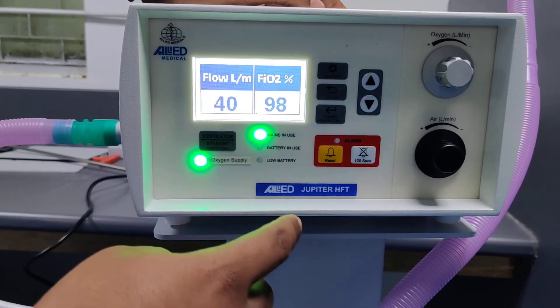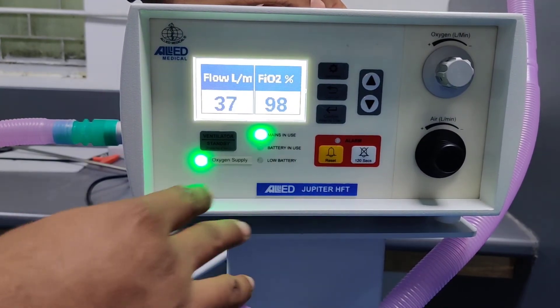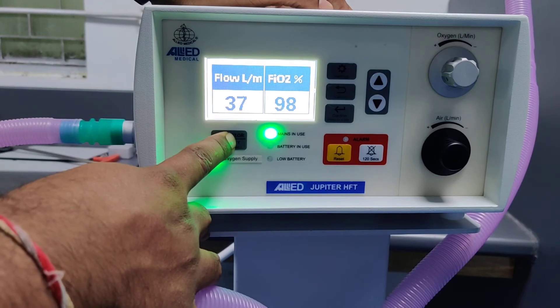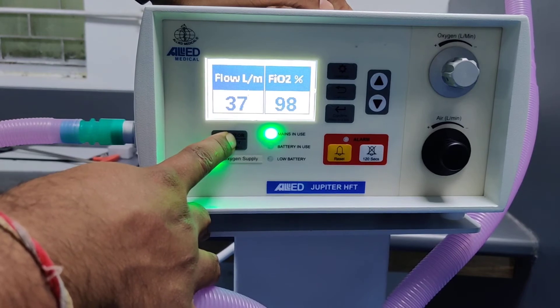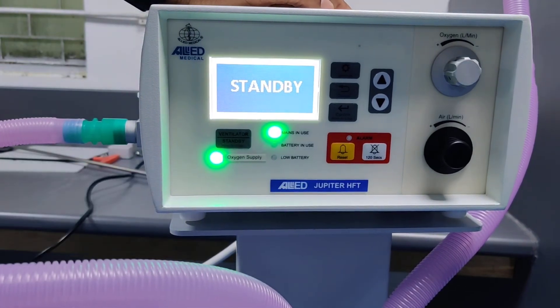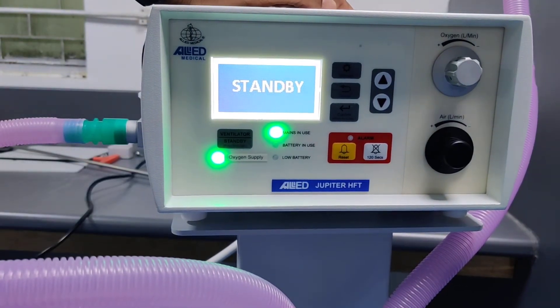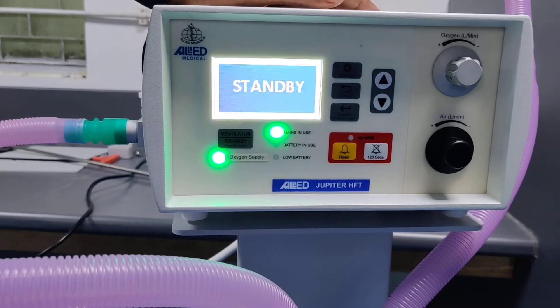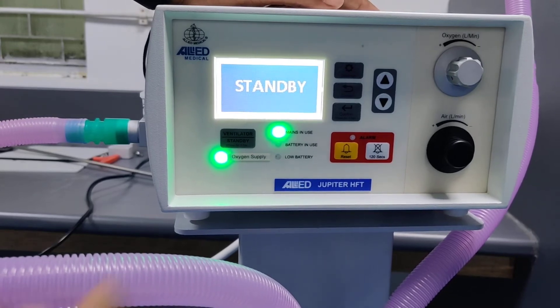To put the machine back into standby mode, press and hold this button and you will get the standby display on the screen.